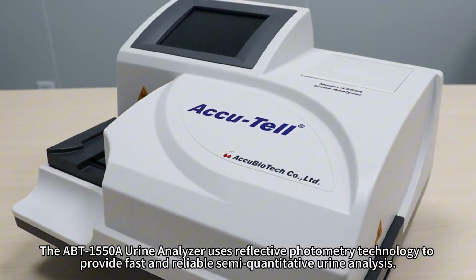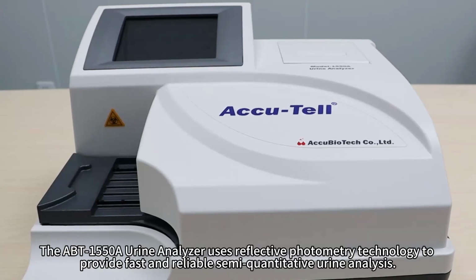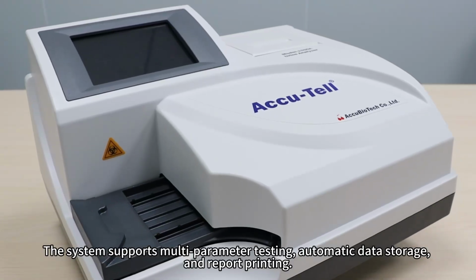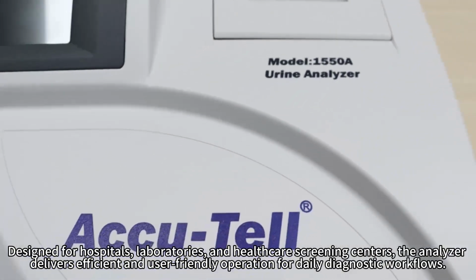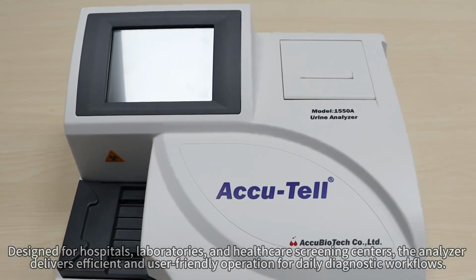The ABT-1550A Urine Analyzer uses reflective photometry technology to provide fast and reliable semi-quantitative urine analysis. The system supports multi-parameter testing, automatic data storage, and report printing. Designed for hospitals, laboratories, and healthcare screening centers, the analyzer delivers efficient and user-friendly operation for daily diagnostic workflows.